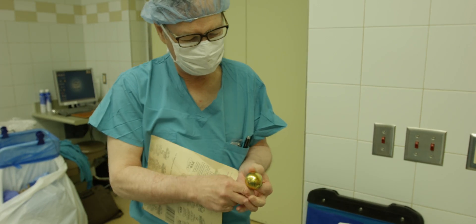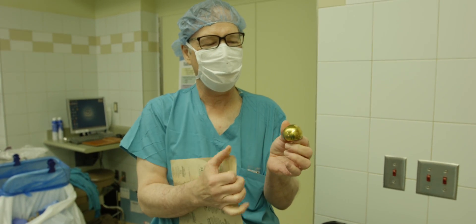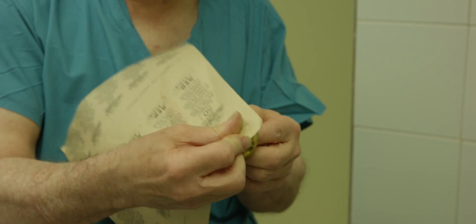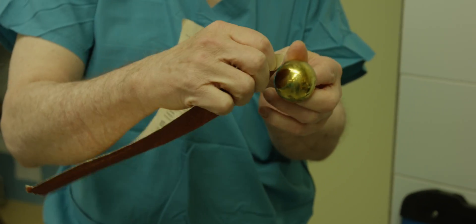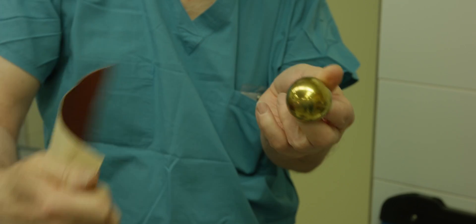Here's a gold, titanium nitride coated resurfacing implant. Sandpaper on it — you can hear from the audio. I got a fresh corner of the sandpaper that's really abrasive. Couldn't really do anything in the way of a mark.